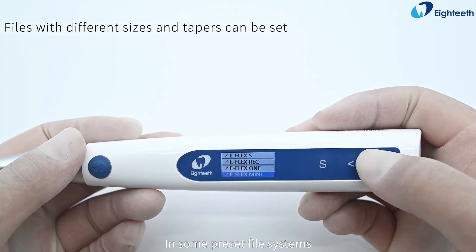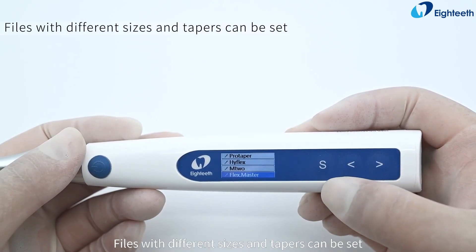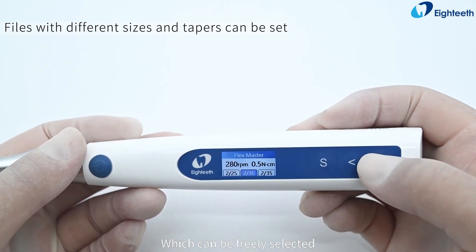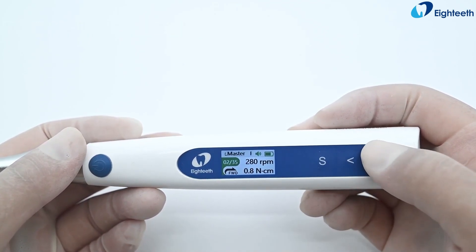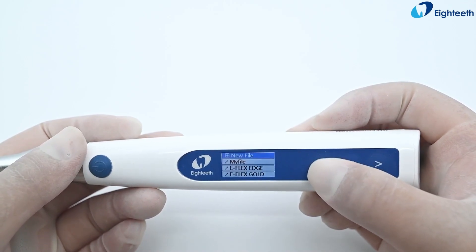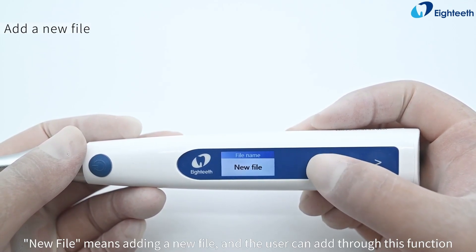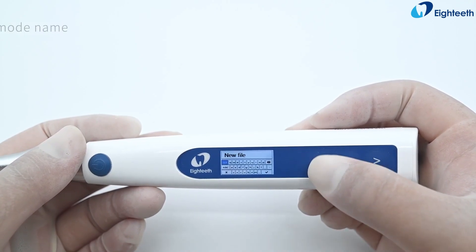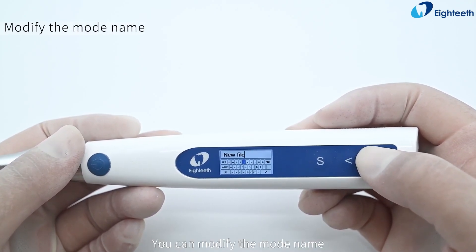In some preset file systems, files with different sizes and tapers can be set and freely selected. New file means adding a new file, and the user can add through this function. You can also modify the mode name.